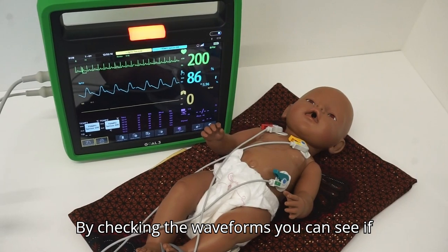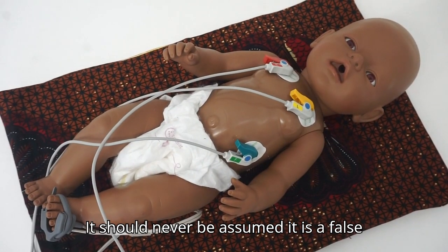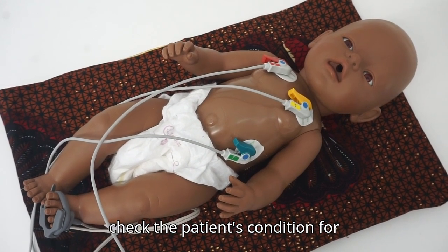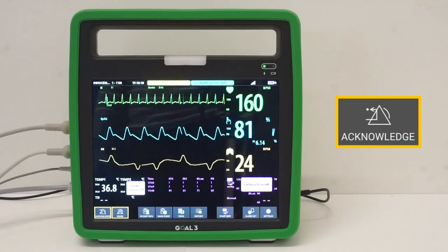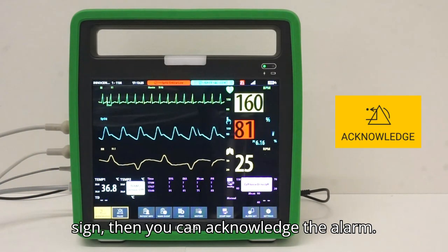By checking the waveforms, you can see if the measurement is accurate or if it might be a false alarm. It should never be assumed it is a false alarm without actually assessing the situation of the patient. You should check the patient's condition for emergency signs and act accordingly. When you've responded to the situation and you accept the current alarming vital sign, then you can acknowledge the alarm.